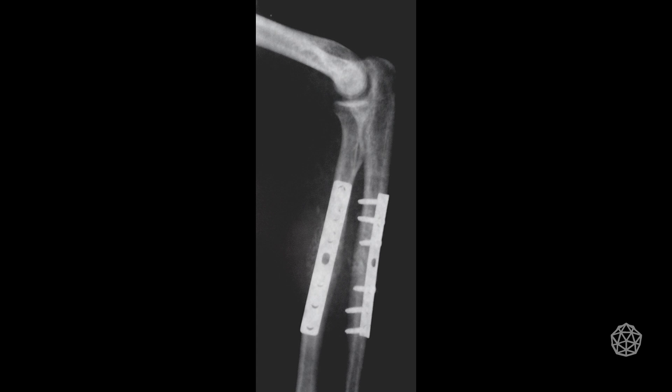Of course, his wife doesn't believe him. But it is a complication — in his case, he needs a second surgery to have the implant removed, or the orthopedic surgeon says they've been in for six to eight weeks, let's pull them out. That's the standard operating procedure. Instead of having a second surgery, the idea is to have an implant that degrades — using hybrid additive manufacturing to control how fast it degrades.